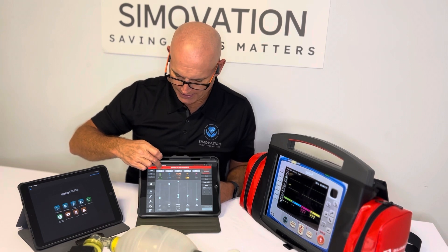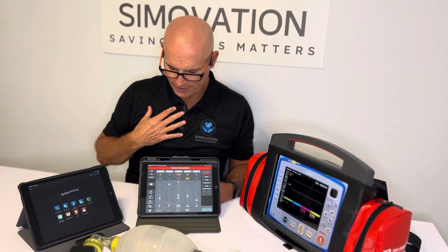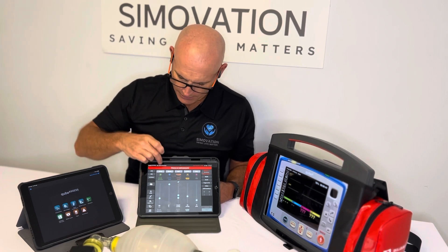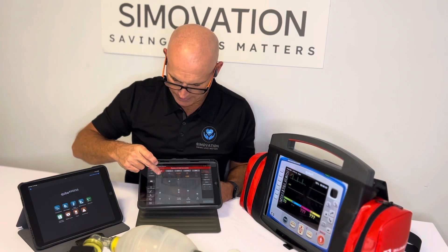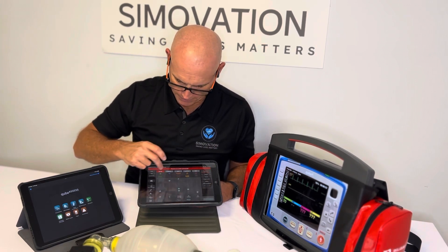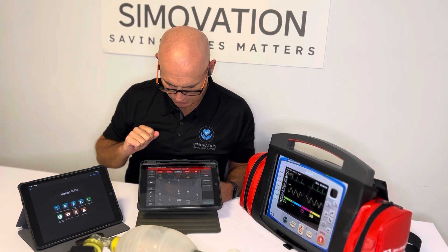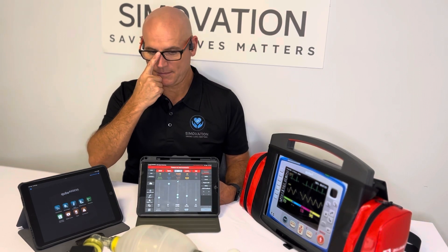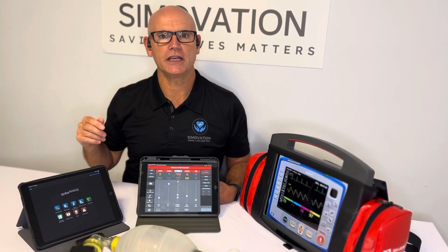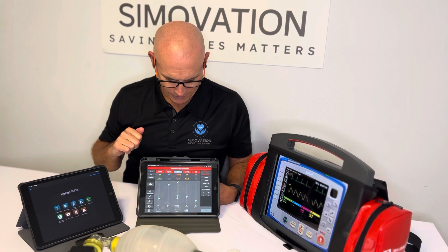If I want to apply ECG leads with the CPR sensor, I can go in and tap ECG leads, press 12-lead, and now we're beginning to get the rhythm up on the monitor. We'll get some SATs, some end-tidal CO2, and a respiratory rate. You can do invasive blood pressure as well, of course, but that just depends on how you're running your scenario and who it's being delivered to in terms of the level of care they're able to provide.